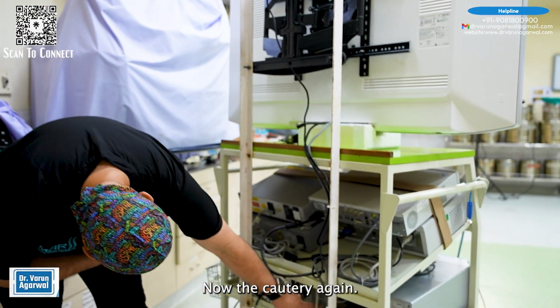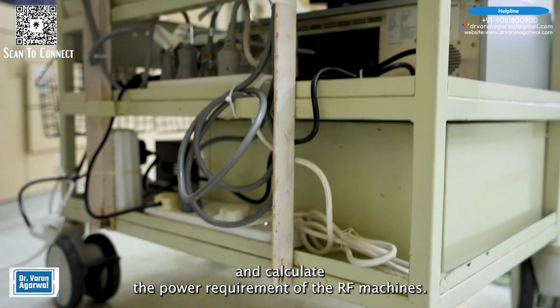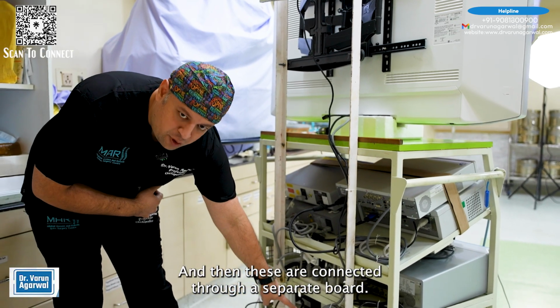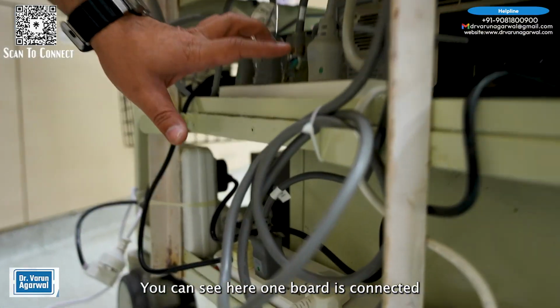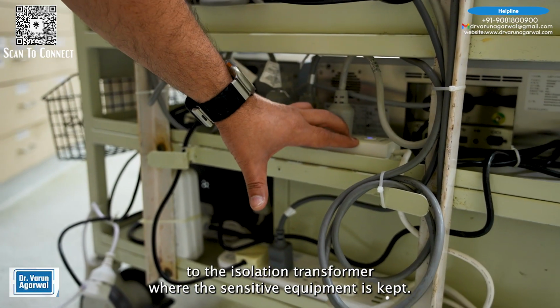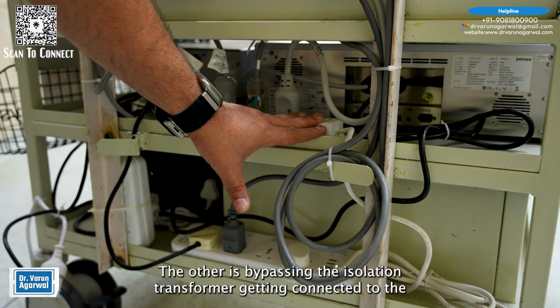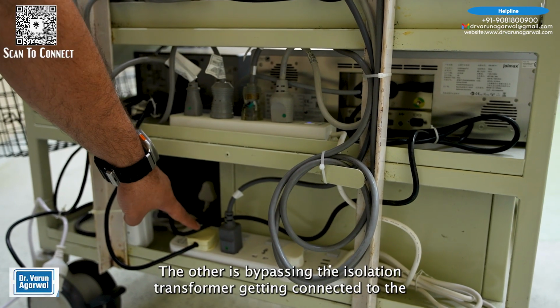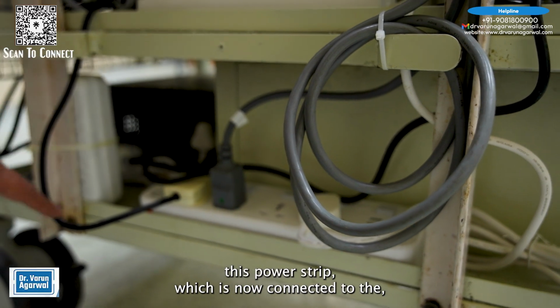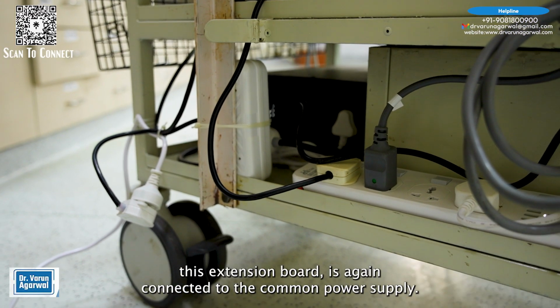Now the cautery, again similarly, we can see the sticker and calculate the power requirement of the RF machines, and then these are connected through a separate board. You can see here one board is connected to the isolation transformer where the sensitive equipment is kept, and then it is connected to the power socket. The other is bypassing the isolation transformer, getting connected to this power strip, which is now connected to this extension board, which is again connected to the common power supply.